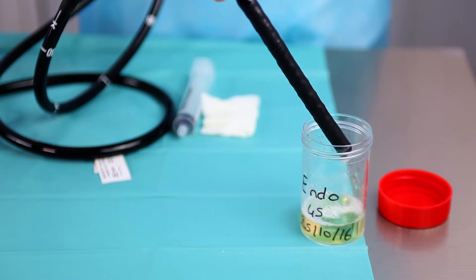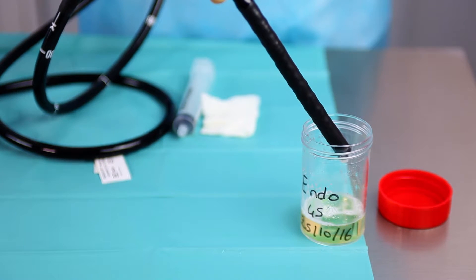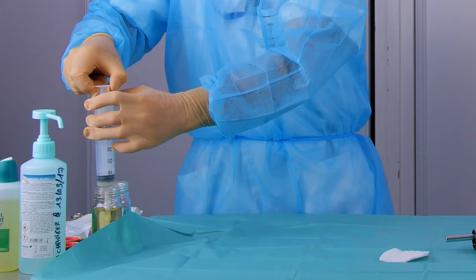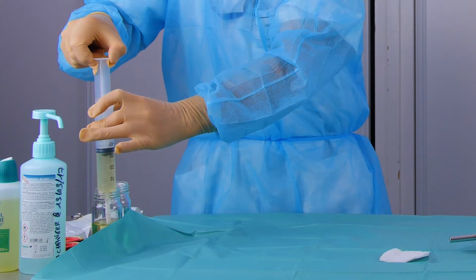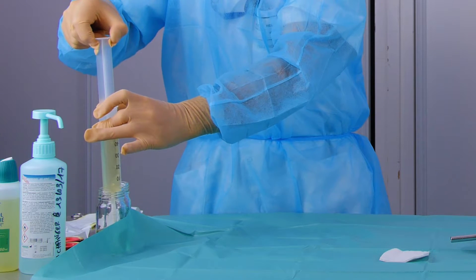As part of a particular investigation, it is possible to sample each canal individually. In this case, a different sampling bottle is used for each canal.